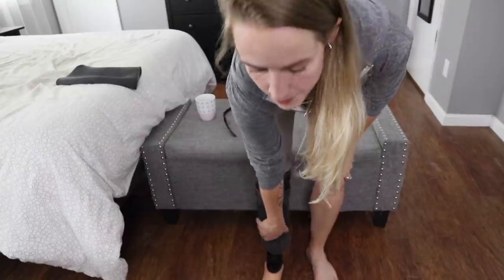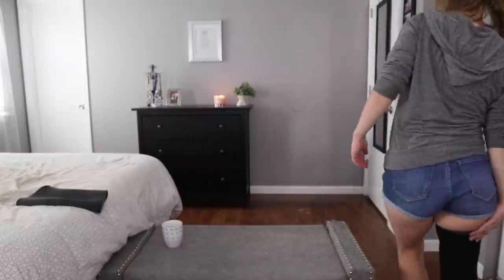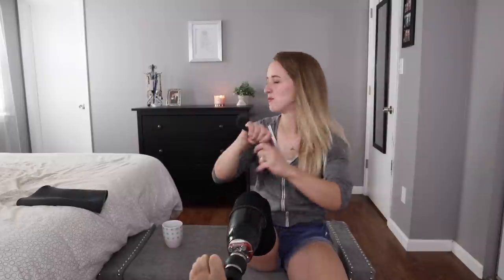In case you haven't seen any of my other videos where I'm doing this — to get this on my leg, fold it down like so. You pray that too much dog hair doesn't get caught on the outside in the process; it never works, by the way. Also, I always roll down the top of my liner — this thing is also a weird sticky sort of moist substance — and it connects with the sleeve and thus forms the suction that is necessary to walk. Man, this is tight tight tight.